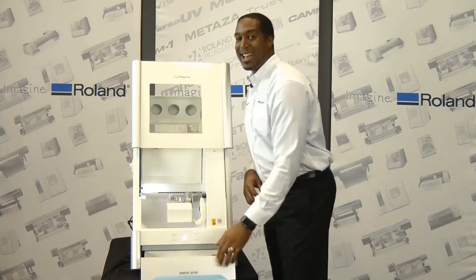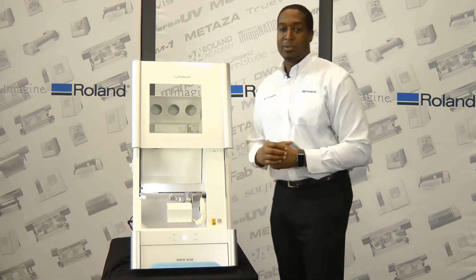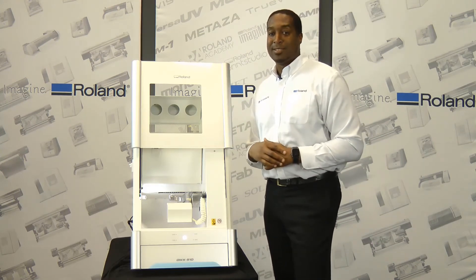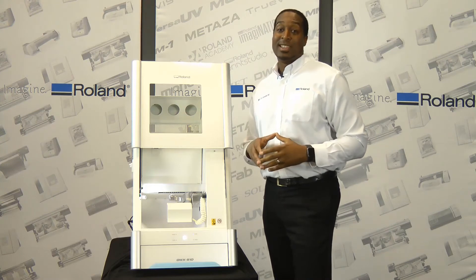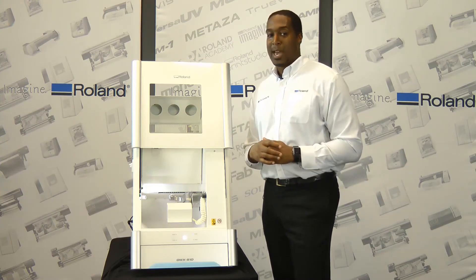You can use that to tighten two screws that will keep enough tension on all of your materials. It also allows you to mill materials at a 90-degree angle during operation, a key feature that allows direct milling to the facial or buccal anatomy of long-span bridges.